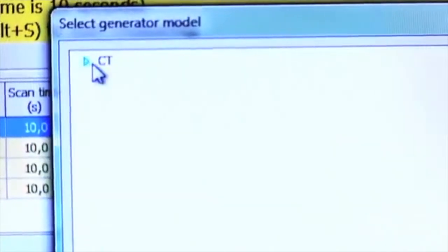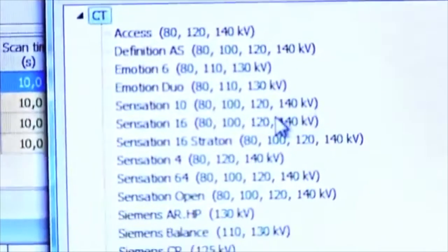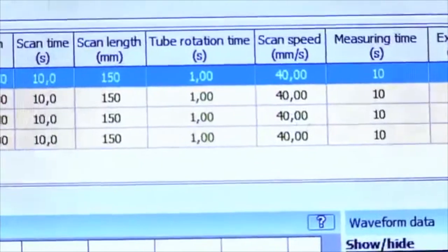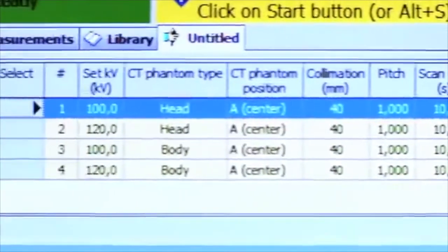This is to get the right K factor. The K factor is what allows the CT dose profiler to extract all the parameters in one exposure.